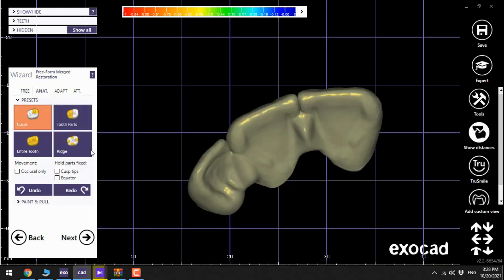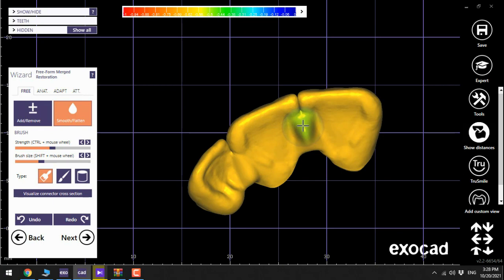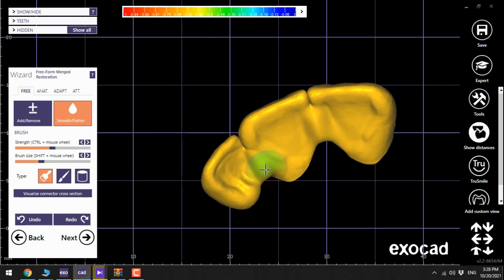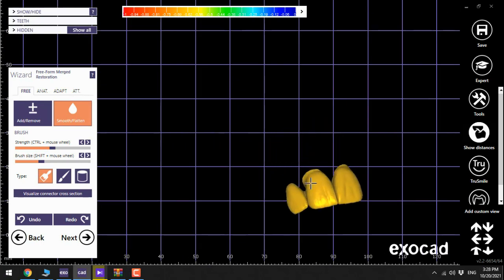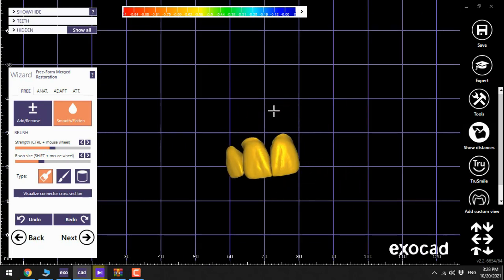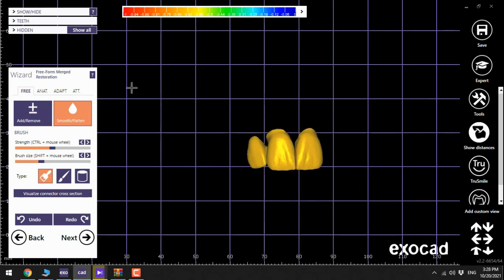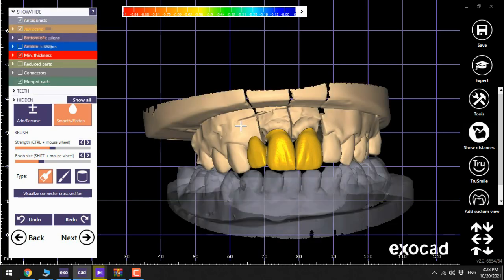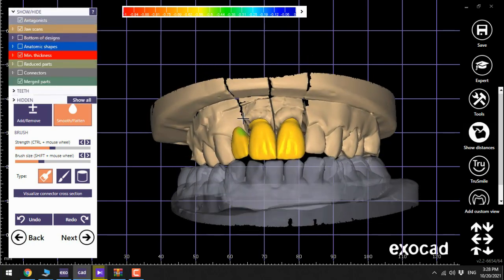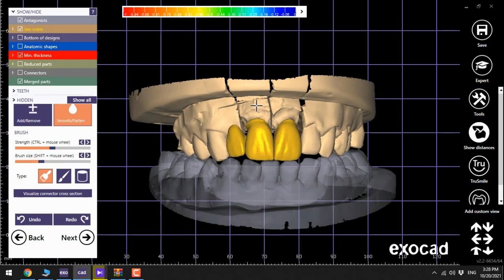Now it's time to do some smooth flatten to make it more beautiful. Now the bridge is ready.